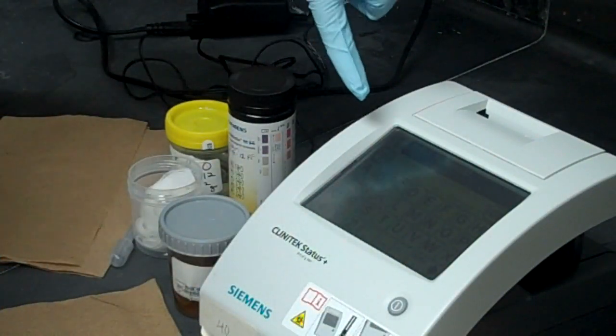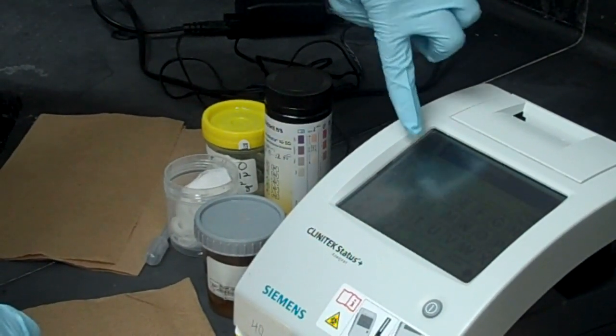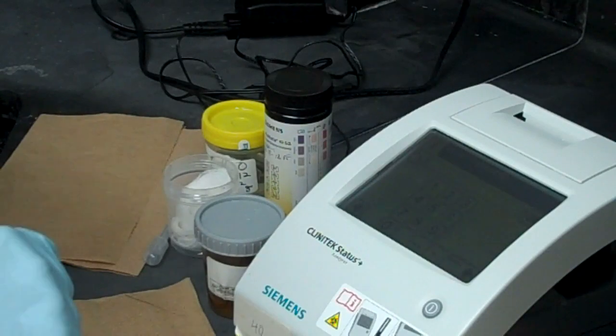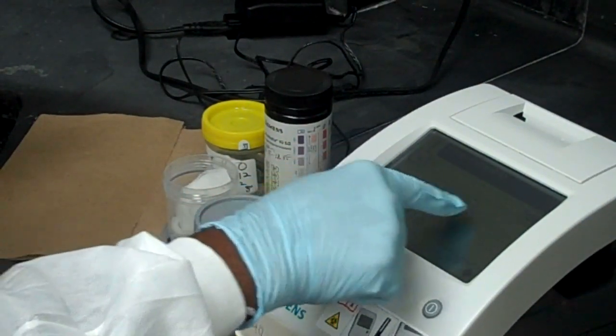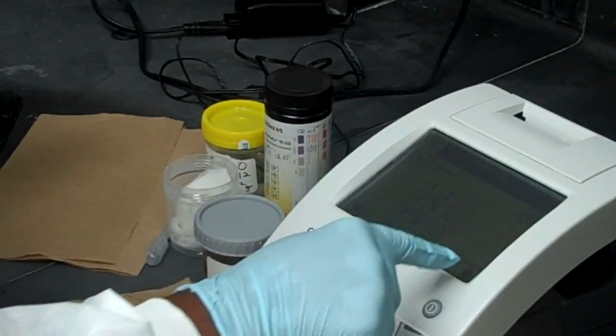Now we also press the number. There's a number key. We press that to enter the patient's ID which is the patient's date of birth. Press enter.